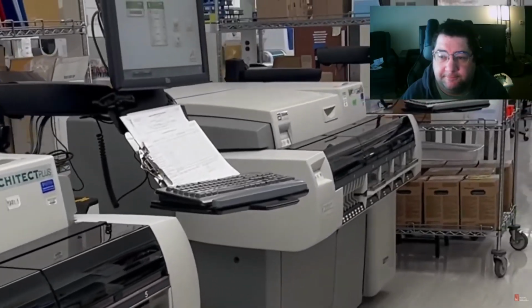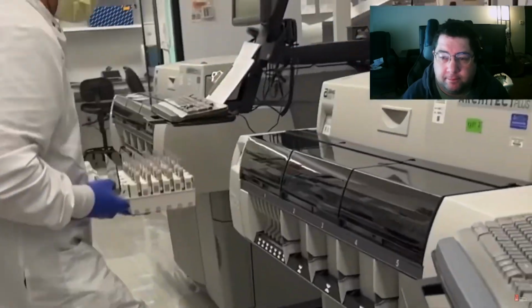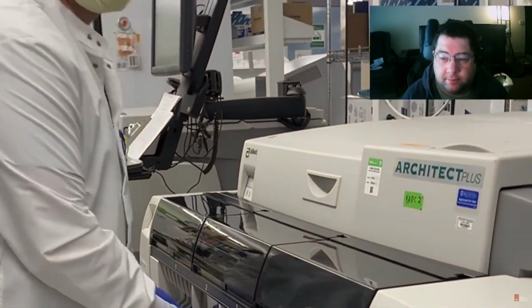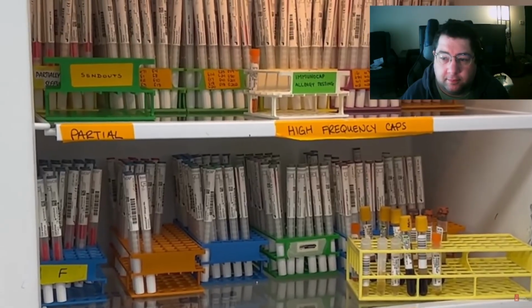Immunoassay analyzer, is used to detect antibodies to syphilis, hepatitis A, B, and C viruses, and antigen detection of hepatitis B virus. This instrument is also used for fourth-generation HIV testing, a combination antibody and antigen assay that allows for early detection of HIV infection.